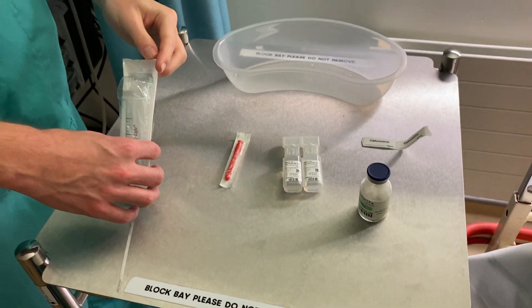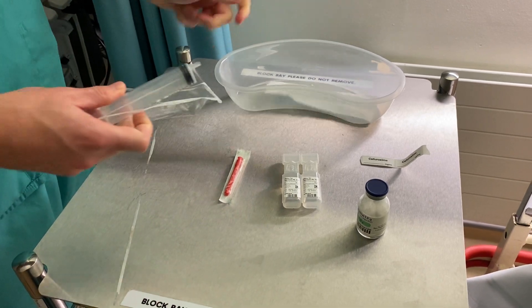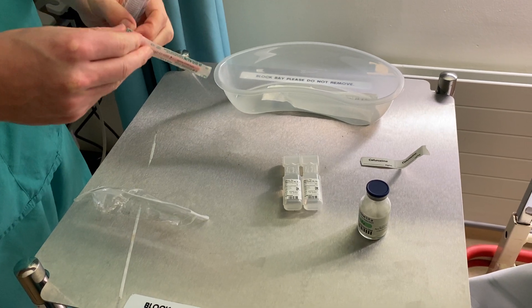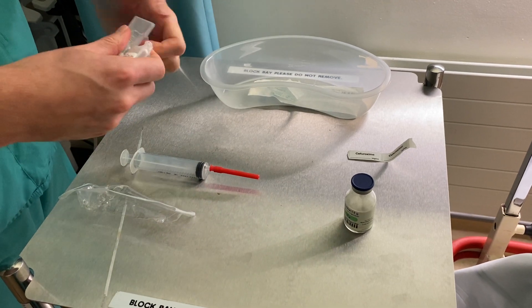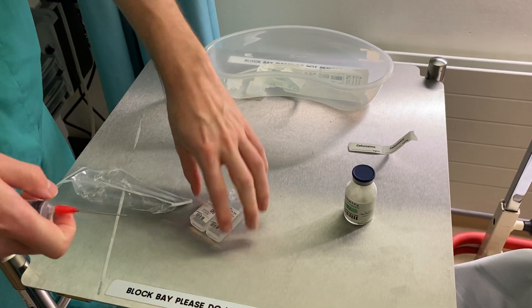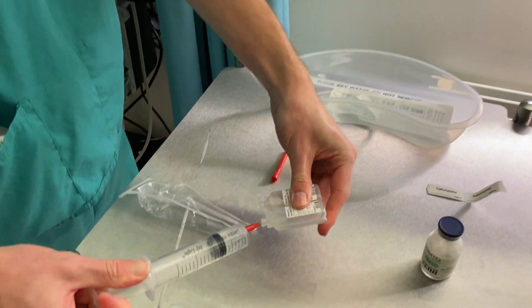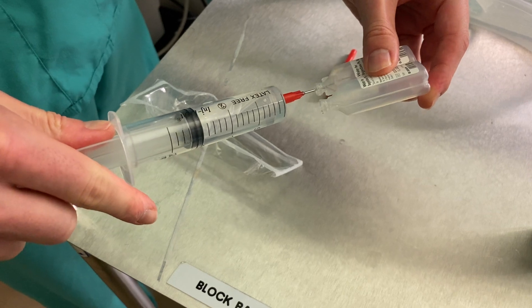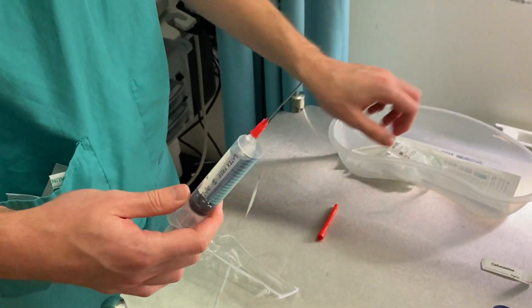So Willow is going to show us how he makes up an antibiotic. First thing we're going to do is draw up the water into the syringe. This is a 20ml syringe so we're just going to put 15ml of water in it first so that your syringe isn't completely filled. You want a little bit of extra space in your syringe so that you have room for the powdered drug that you're about to draw up into it. So we start with just roughly 10–15ml or thereabouts — you don't have to be too precise, just so your syringe isn't completely full.